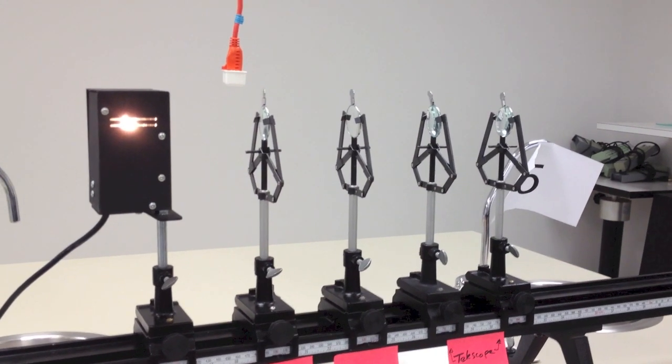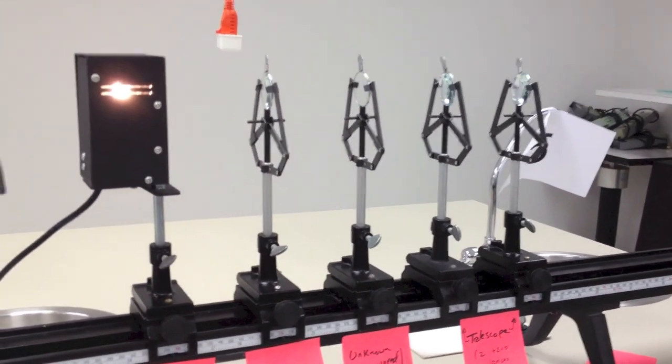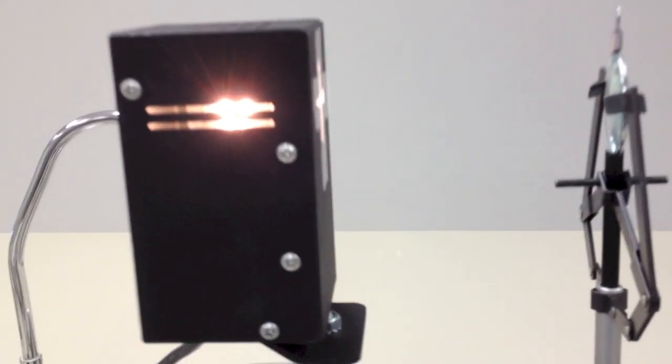Okay, this is our lensometer on the optical bench, and the pieces of the puzzle work like this.